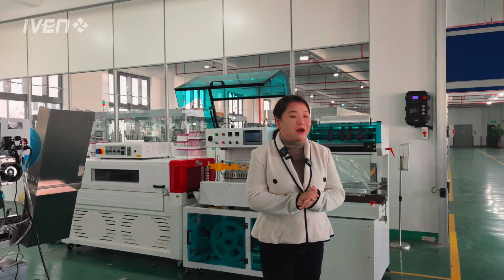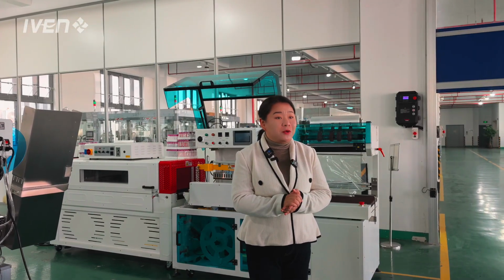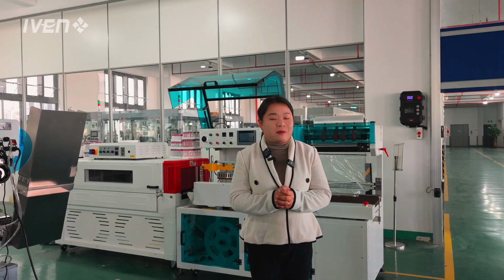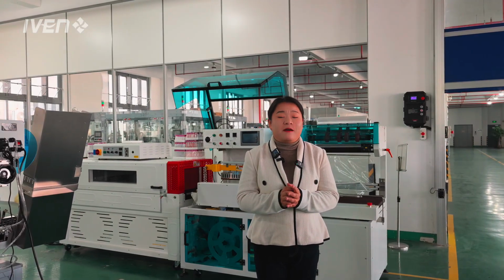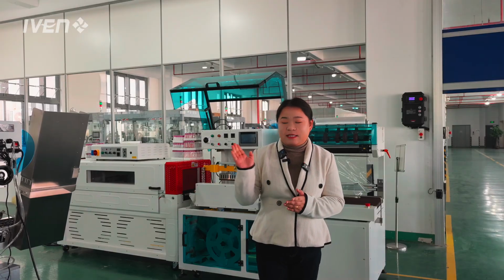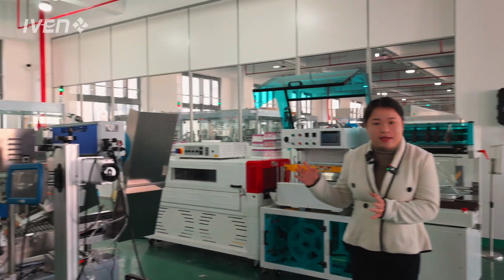Today I will show you our factory, because we have a new machine for blood tube, collection tube production, for blood sedimentation, blood collection assembly today. So I will show you around. First, let's see what we are doing now here.